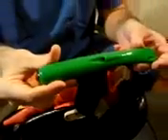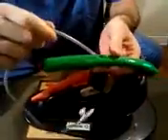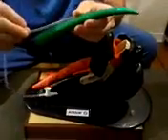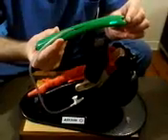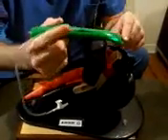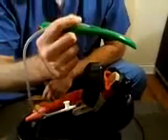That's really where the no-bite comes into play. This is the red button — this is the light switch. It's a suction catheter introducer for the oral airway. There are going to be two methods to doing this. You always preload the tip of the suction catheter, and we recommend holding it like a pen so your finger is pinching the catheter and the weight of the tubing doesn't pull it out.